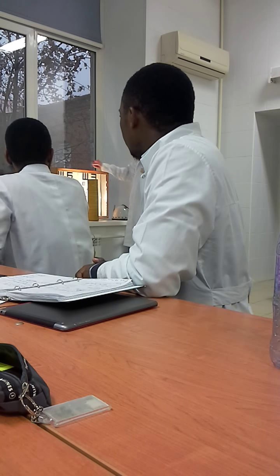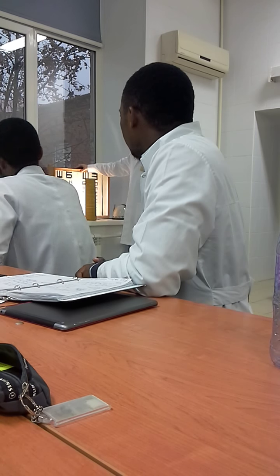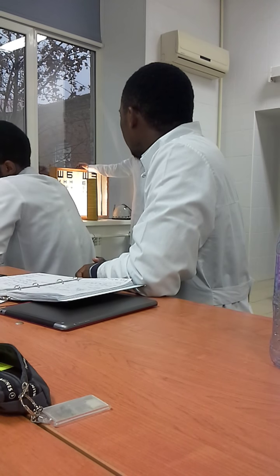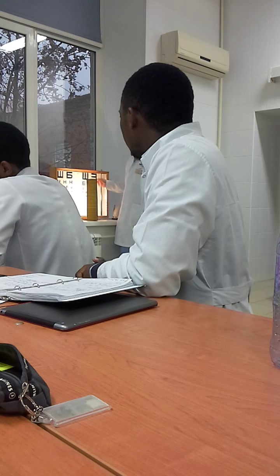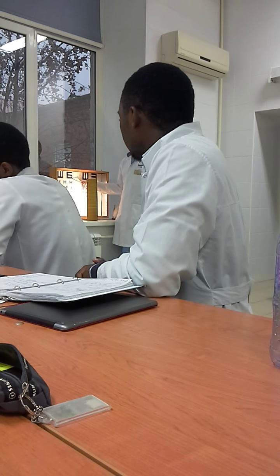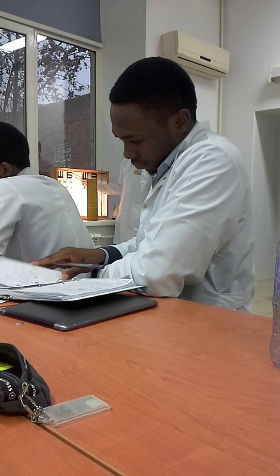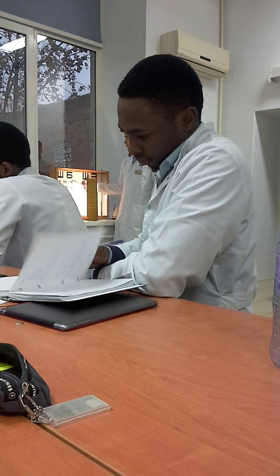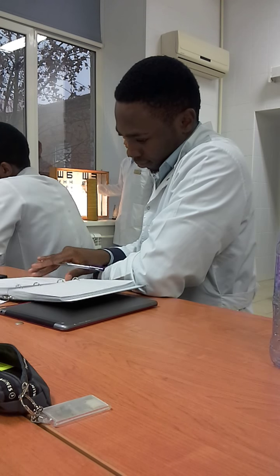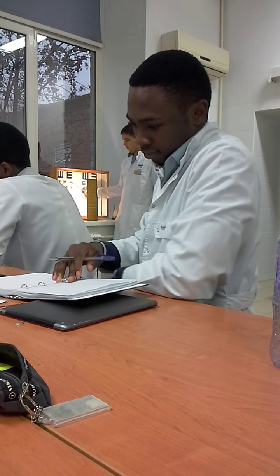Minimal normal visual acuity. As we know already, every line is equal to 0.1. If your patient can read the first line, his visual acuity is 0.1. First and second lines, 0.2. For example, five lines, 0.5.